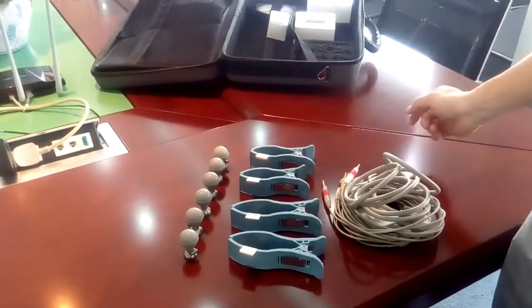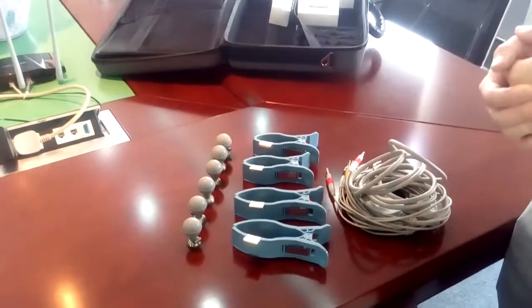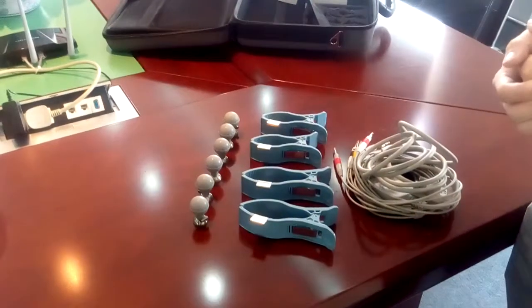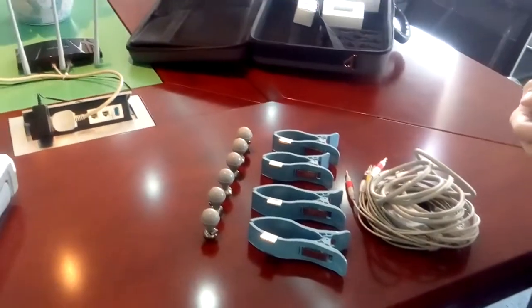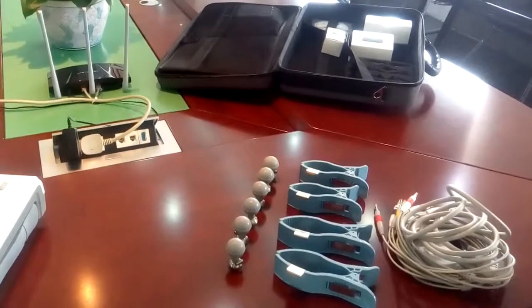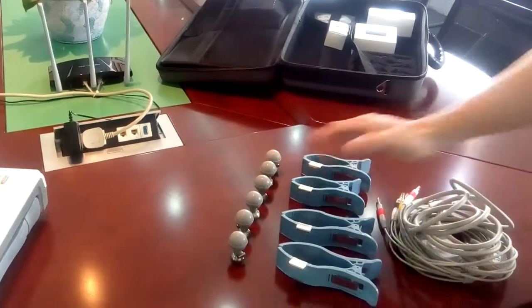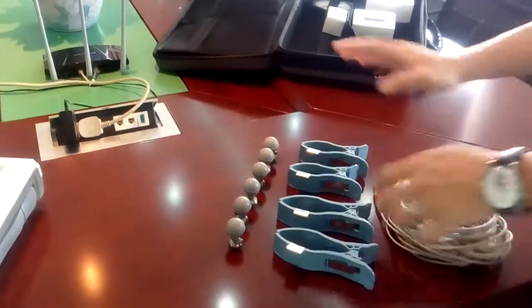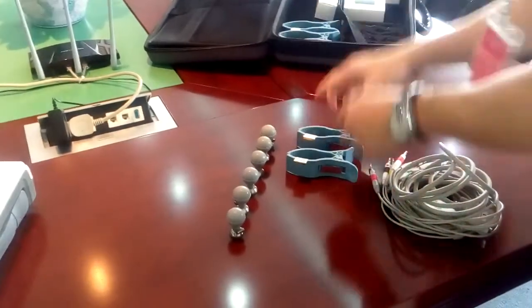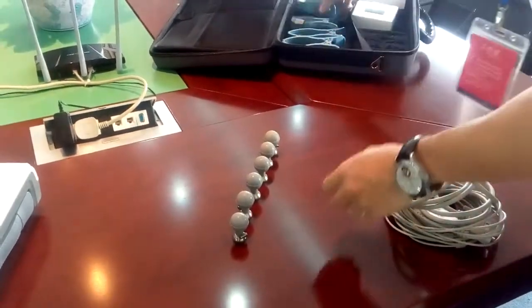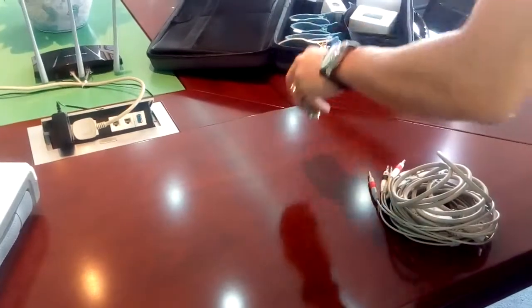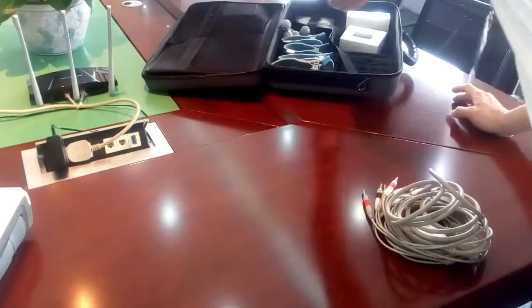What if your customers want an ECG machine that can check the ECG from the pediatric patient? You cannot use the adult accessories. Let's put this back. You have to choose the right accessories for pediatrics.